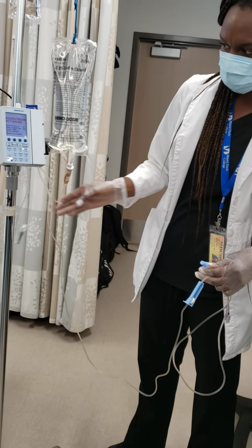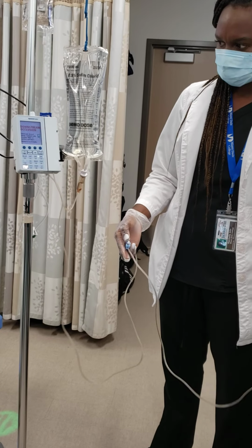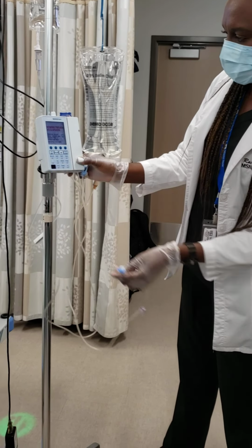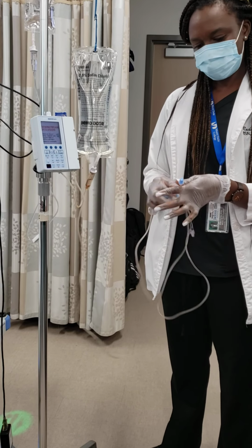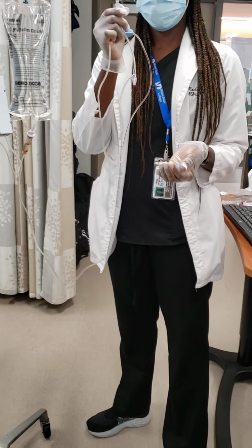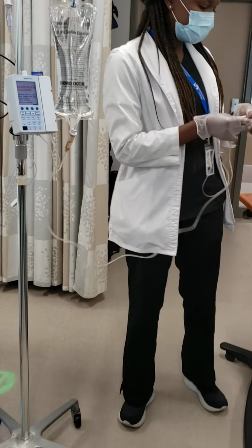No, it's open. It's open. Okay. It should pick it up. I guess the pump is a bit slow, but yeah. So maybe the pump thinks there's an occlusion because it's not hooked up to somebody and it's not moving the fluid. No. Because it's not dripping. No, it's working now. I think it's open. I think it's working. Yeah. Because it was closed to the tip.